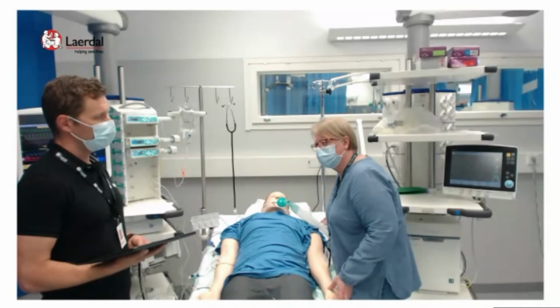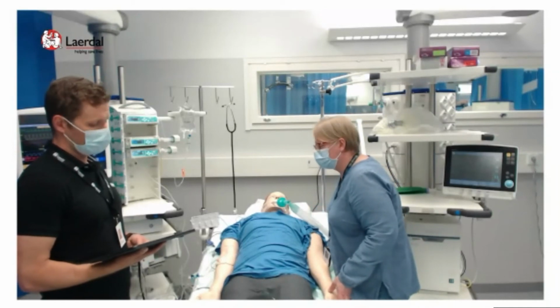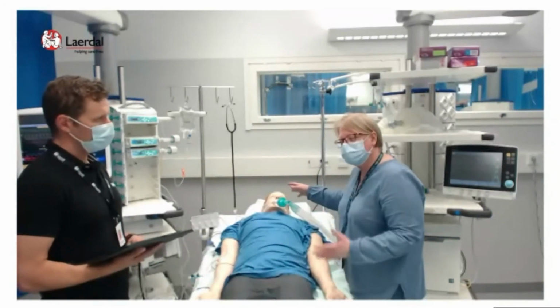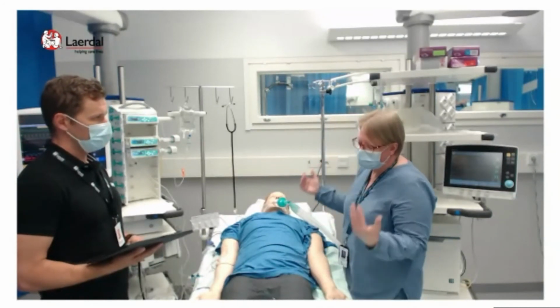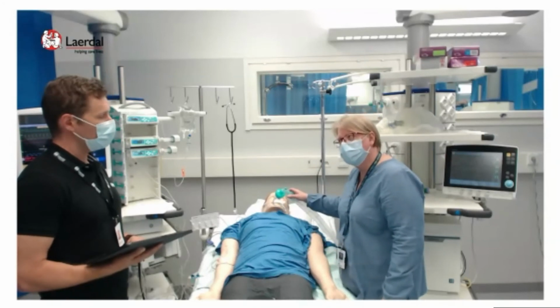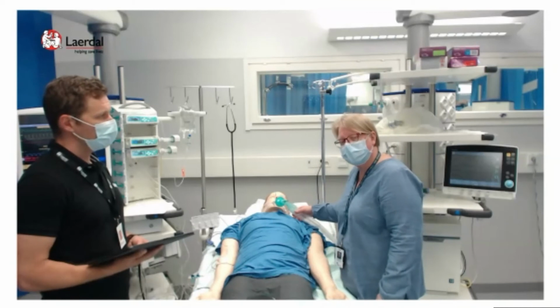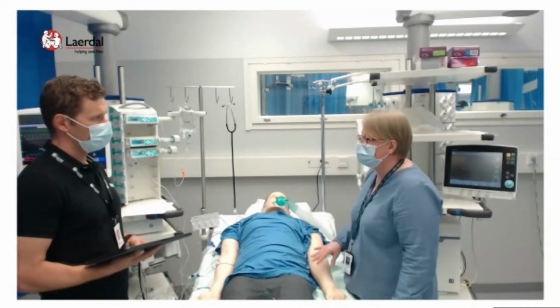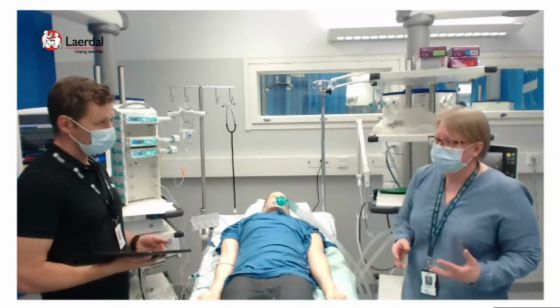Our beds are not such that you can put the cassette under, so they have to lift the patient and put it under the patient. So they have to do it as a team. They have to prepare it safely, because the loss of the tube in this kind of patient is a catastrophe. So that is a very important thing, to make ICU procedures safely.